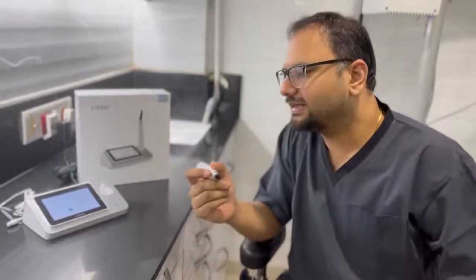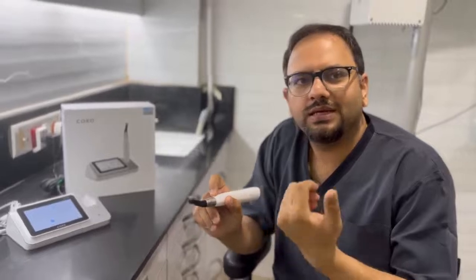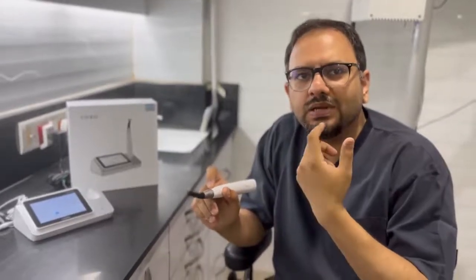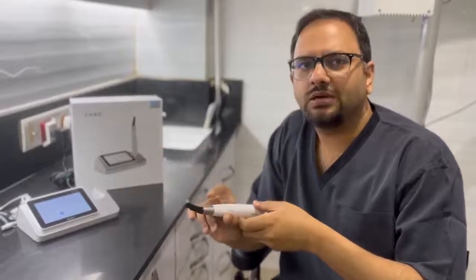The other thing that is unique about this particular handpiece is that it also has an integrated apex locator which works wirelessly. That means I have only one wire that connects to the patient's lip clip and the tooth, and the display shows up over here on the base model.